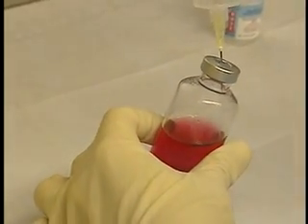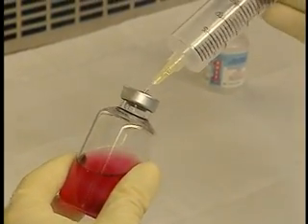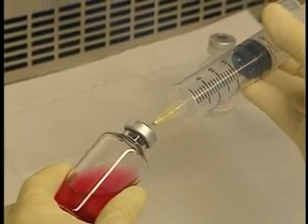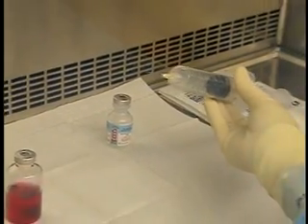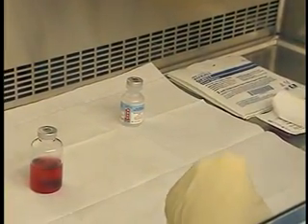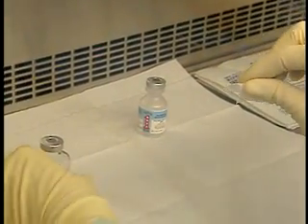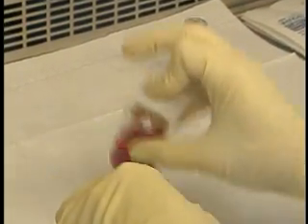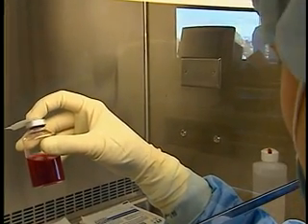Withdraw the needle. To do this you must first clear all fluid from the needle, bevel side up. Tilt the vial slightly to clear the needle from the drug. Draw in a little air by pulling on the plunger with your index finger and keeping it extended until the needle is completely removed — this prevents leaking of the fluid. Place an alcohol swab on the vial and agitate with a circular motion to prevent leakage through the stopper. Before any withdrawals, leave the vial at rest until the product is completely dissolved and the foam generated by the agitation has disappeared.